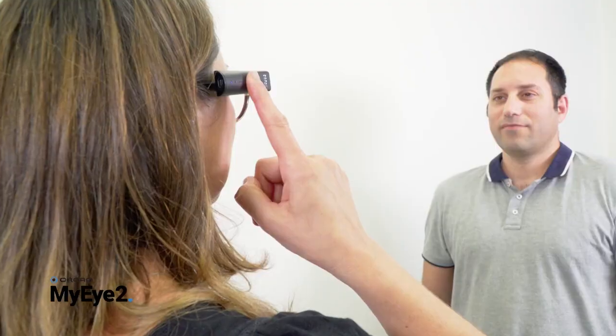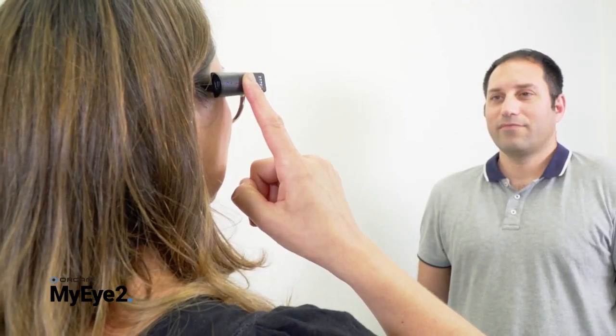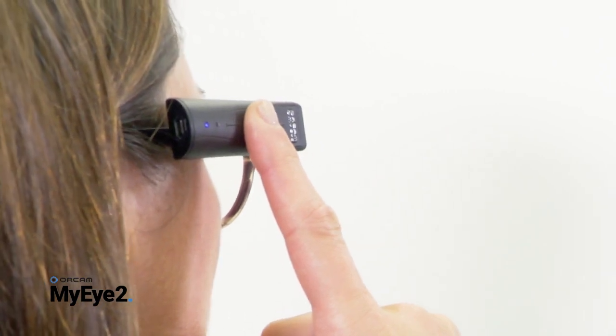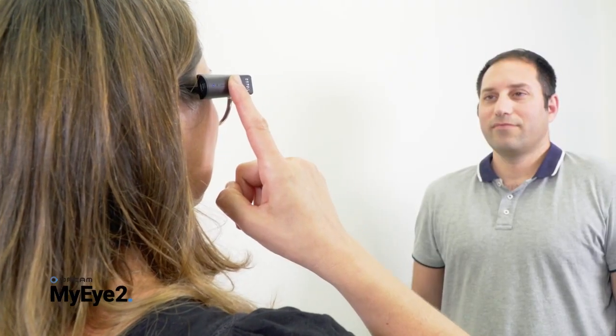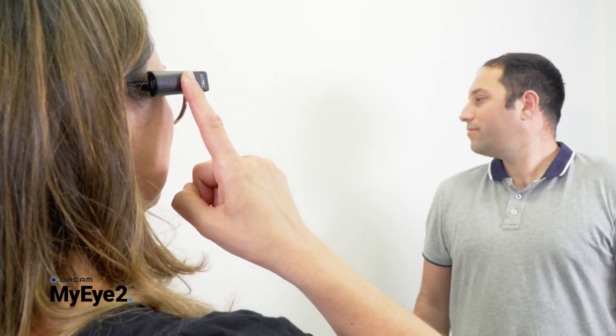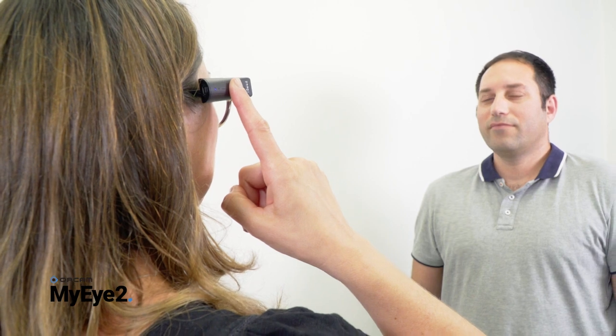You will hear, "Face learning. Please keep holding the bar for up to 30 seconds." Ask the person to move their head slightly to the left and right, and/or put on or take off their glasses. When you have finished learning the face, remove your finger from the touch bar.